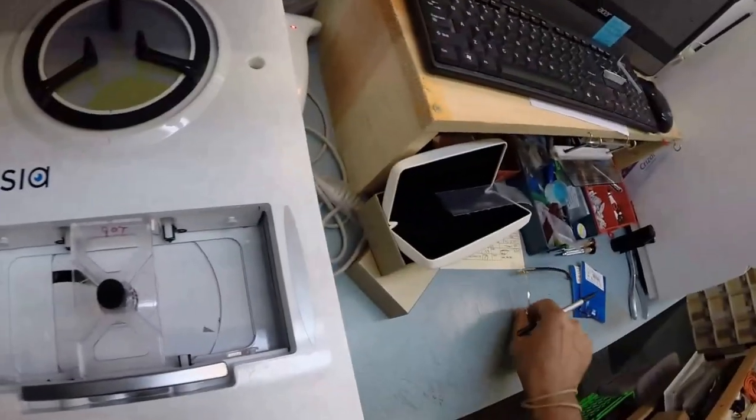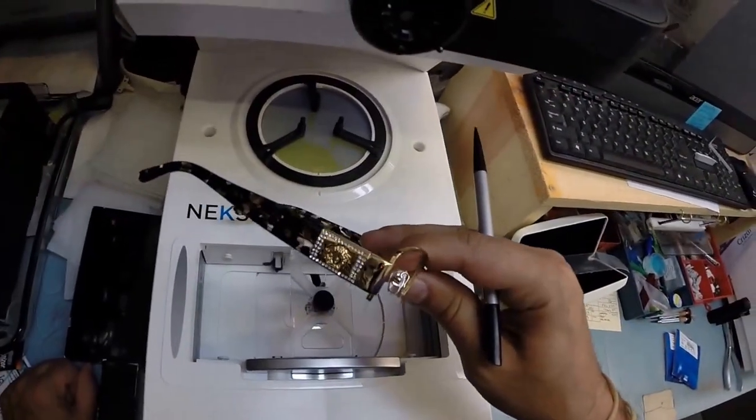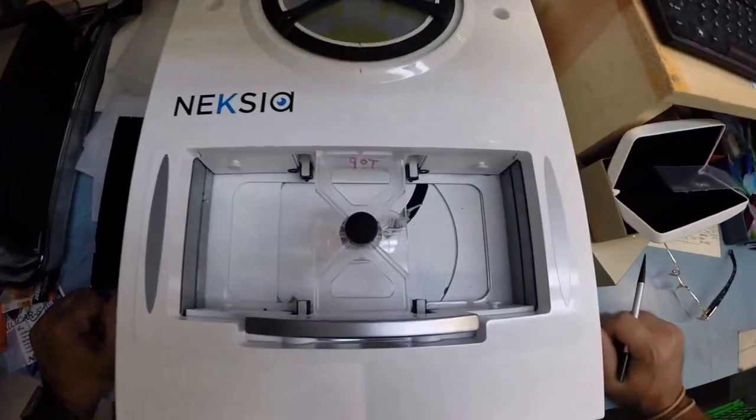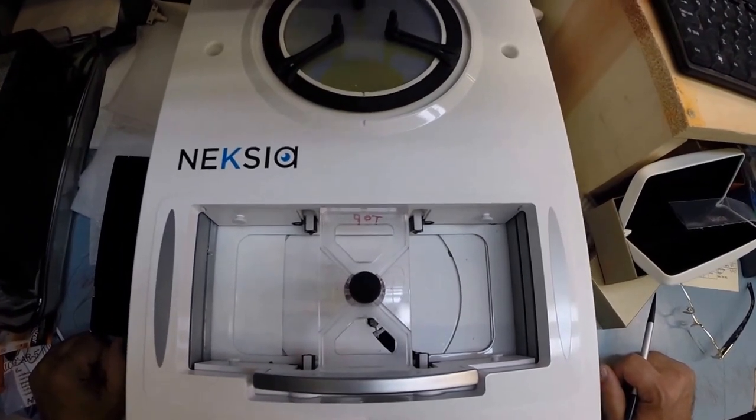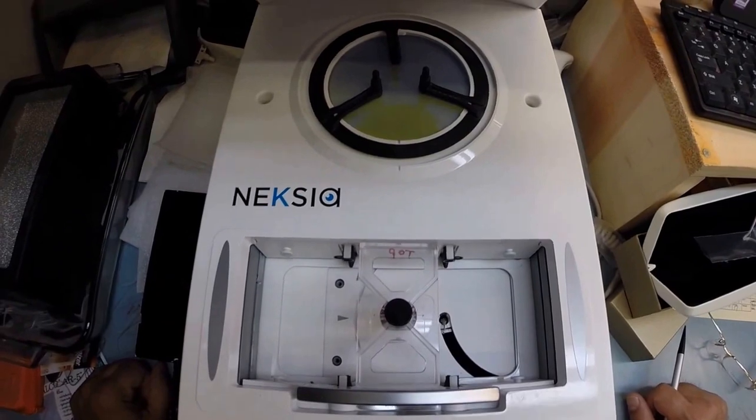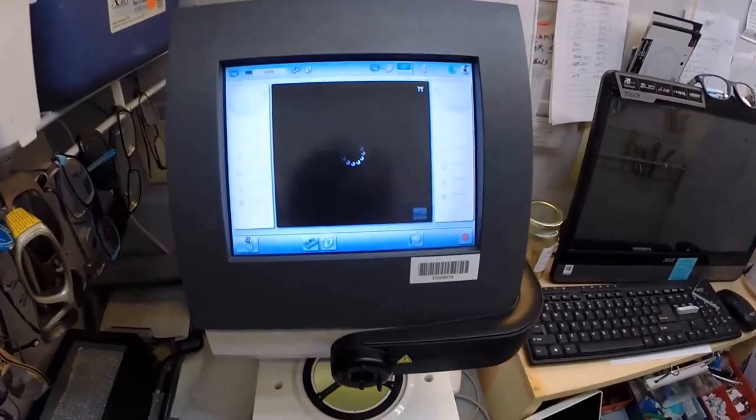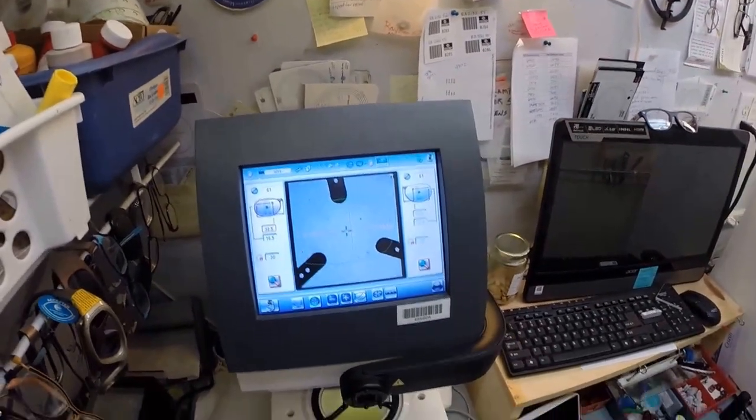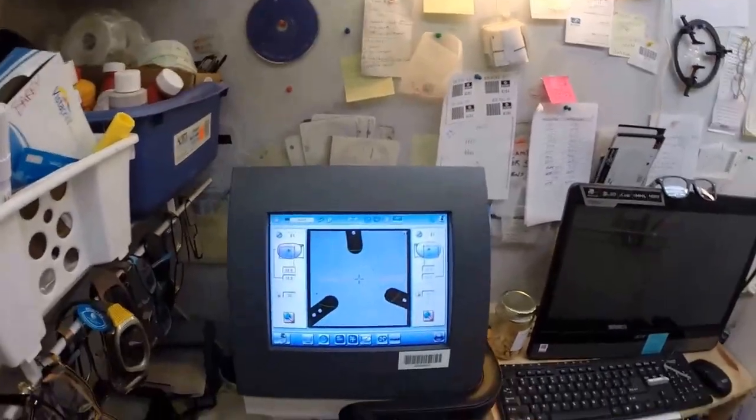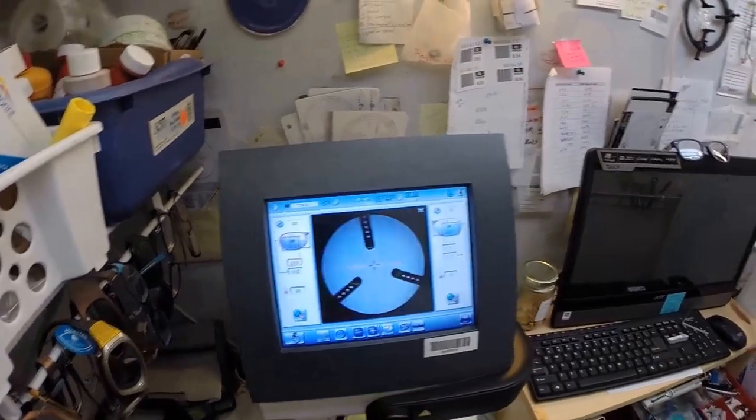It's going to ask me the size of the bridge, which is 17. This little stylus is going to come up and go around and trace the shape of the right lens. Here at freeprescriptionlenses.com, where everyone loves a bargain and no one is disappointed in quality, you buy a genuine authentic Versace frame and you're going to receive one free pair of clear single vision prescription lenses or non-prescription fashion lenses.